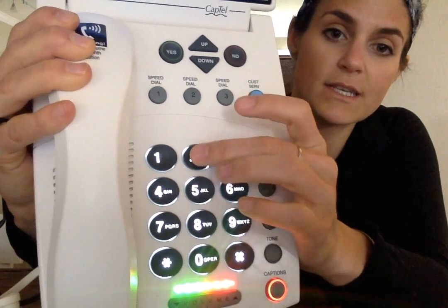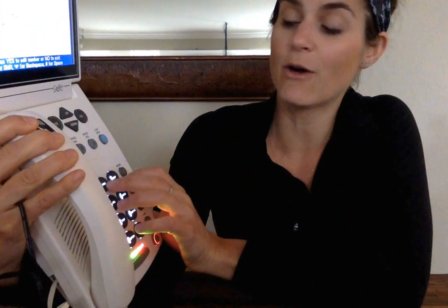So for instance, my name is Crystal, so it begins with a C. I will hit the number 2 3 times to get to the letter C. R, I go to 7, hit P, Q, R. And I'll go ahead and finish out the rest of these letters to write out my entire name.